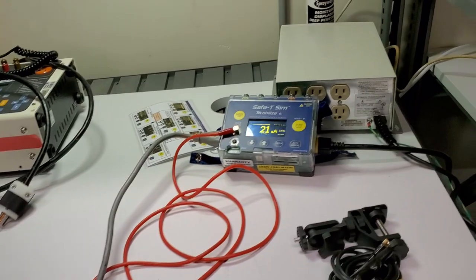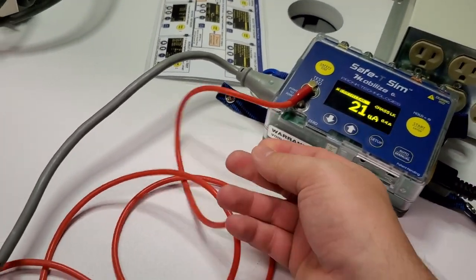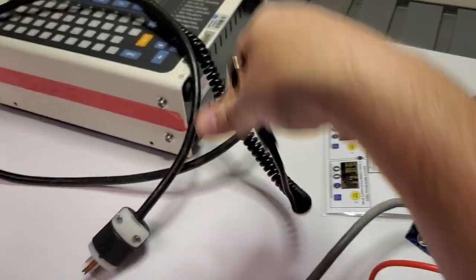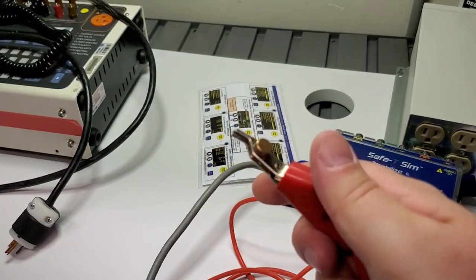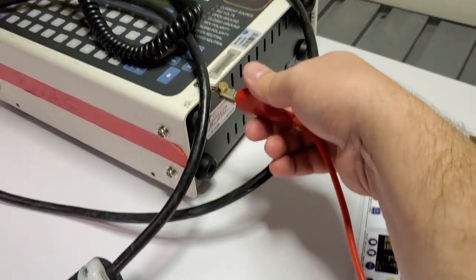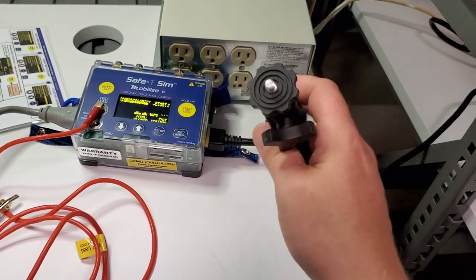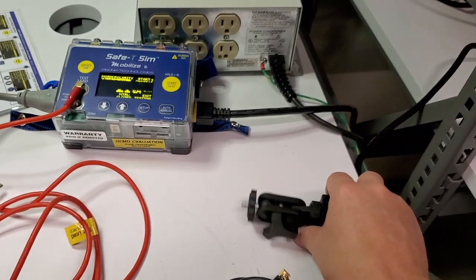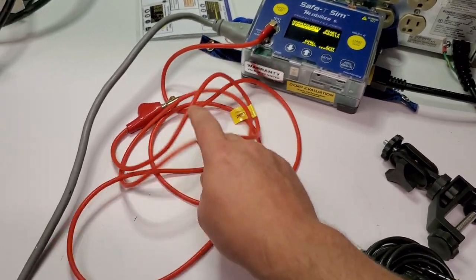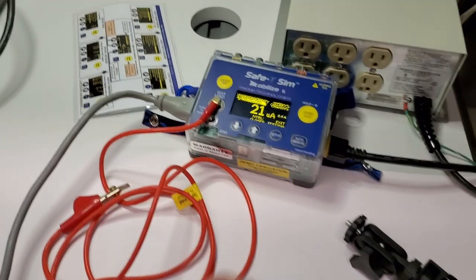It's a really nice display, and you guys know that matters quite a bit to me. The lead is a really high-quality lead — probably one of the best. Compared to the old style leads I used to use, once you go to this style there's no going back — it's second to none, especially on painted surfaces. You can mount it to your cart with the quarter-20 lug on the back — it's just a ball-mount type stud. Point-to-point is rarely used, so normally you just wind the cord around the unit, put it on your cart, and go.